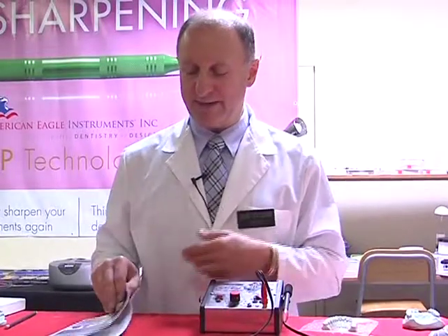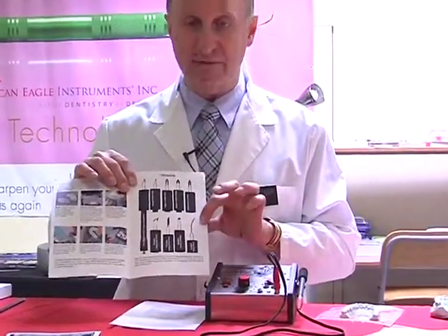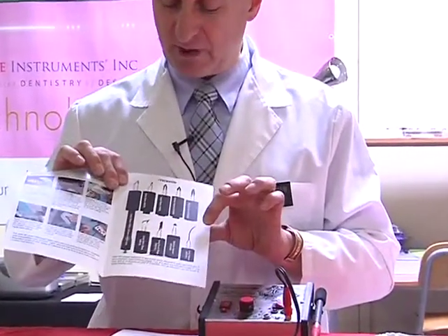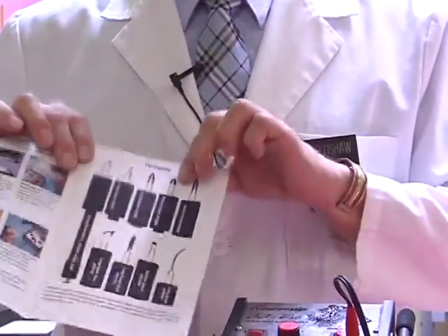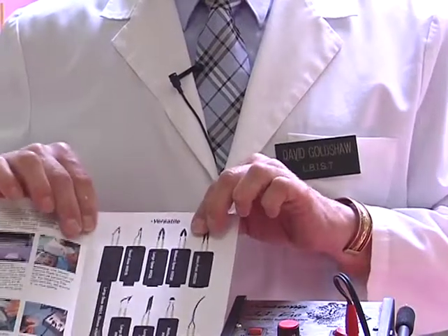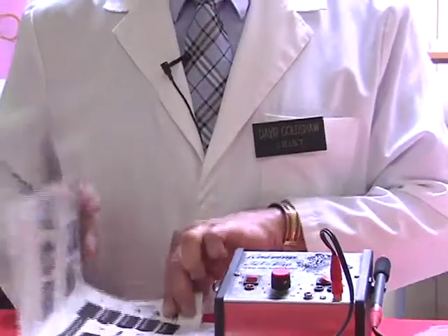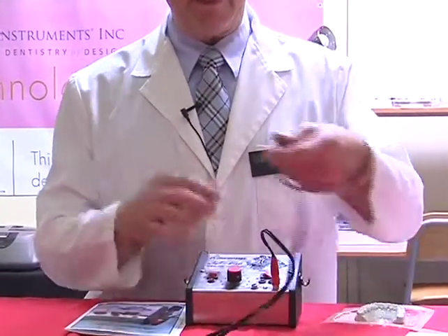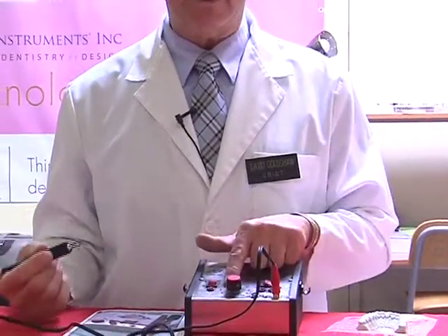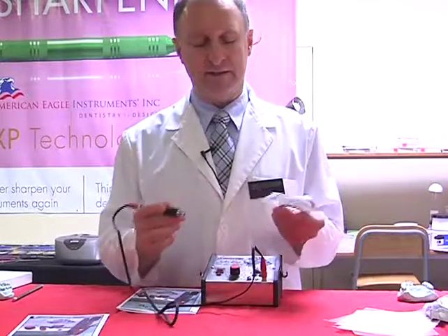As I look through the information on the razor tip, I noticed that I can use one of the various tips that are available. As you can see, there are lots of different tips. The most common one that I have inside there is this one over here, which looks a little bit more like a scalpel blade, and it's perfect for trimming bleaching trays and mouthguard materials. So the razor tip I'm going to remove. I've got the unit turned on to around 4 1/4, and I'm going to start trimming.